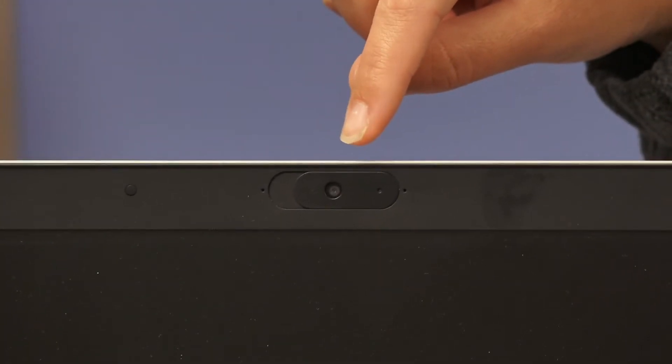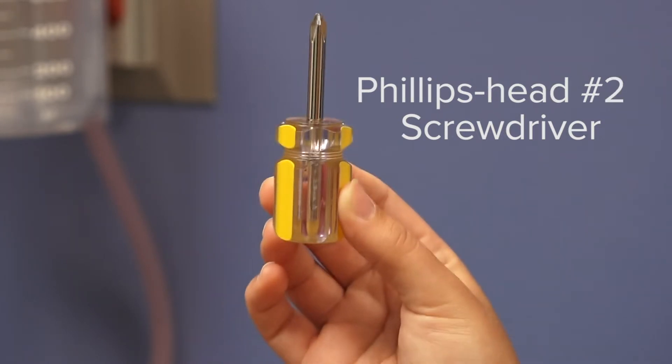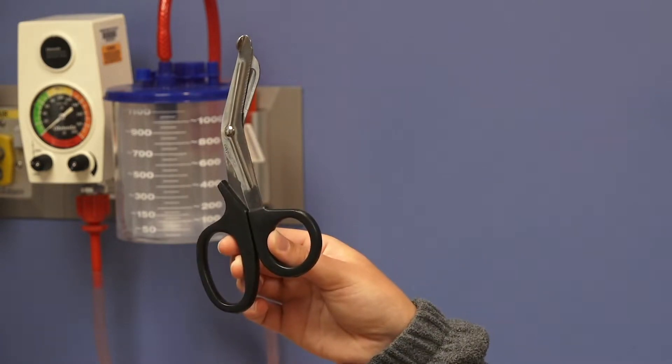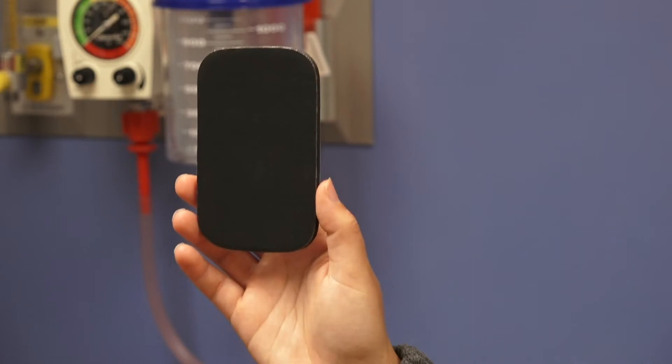Here's what you will need: a webcam, a Phillips head number one screwdriver, a Phillips head number two screwdriver, scissors, and possibly some spare parts such as an extra compression plate, extra compression pads, and screws.